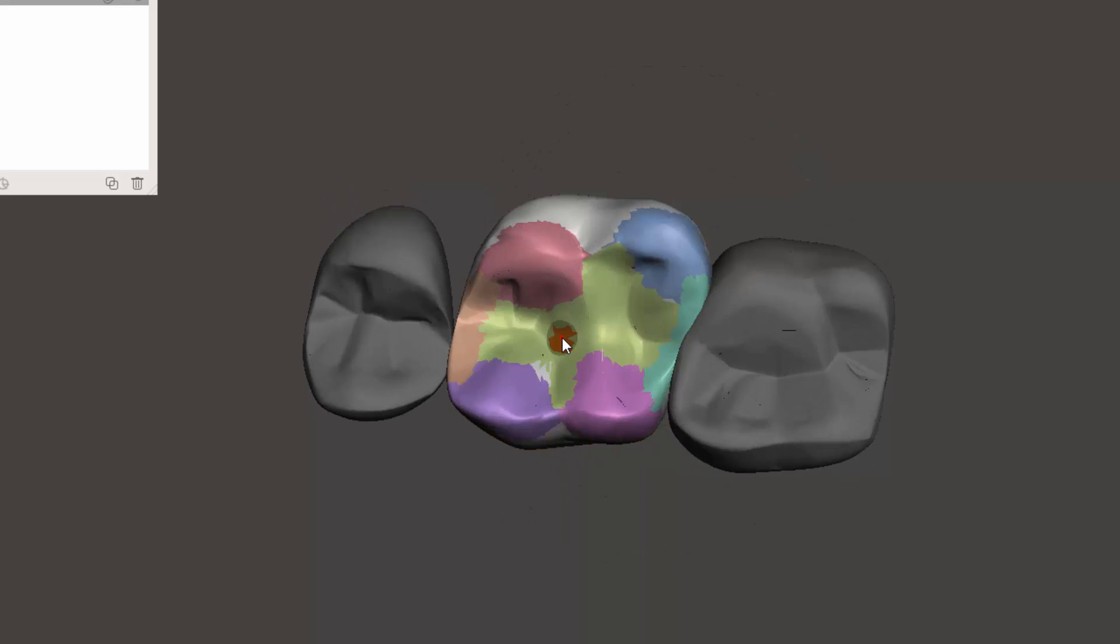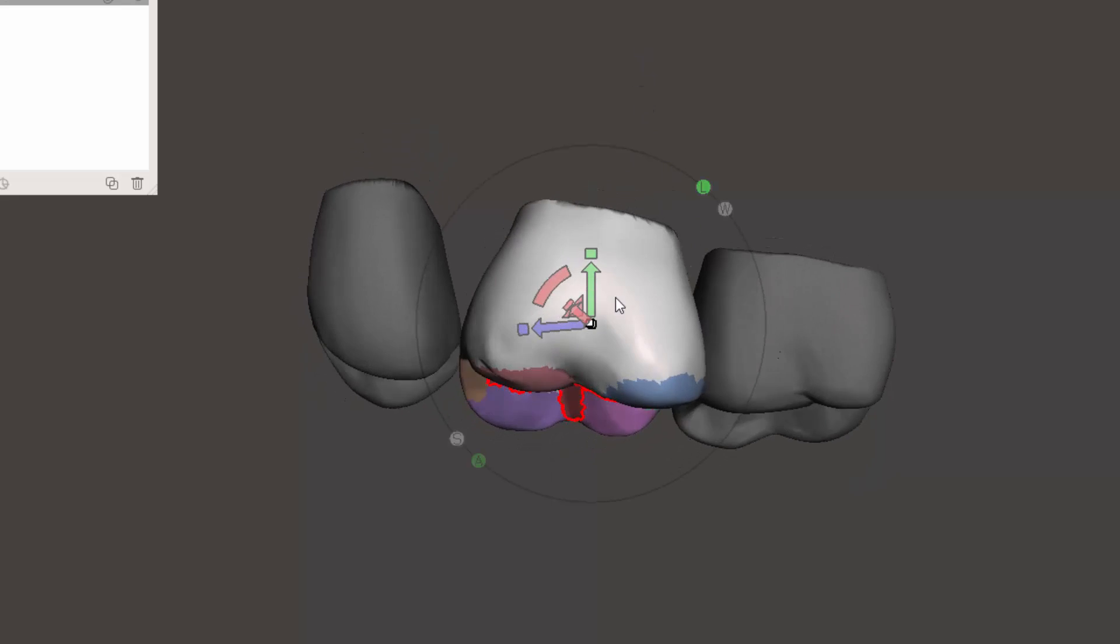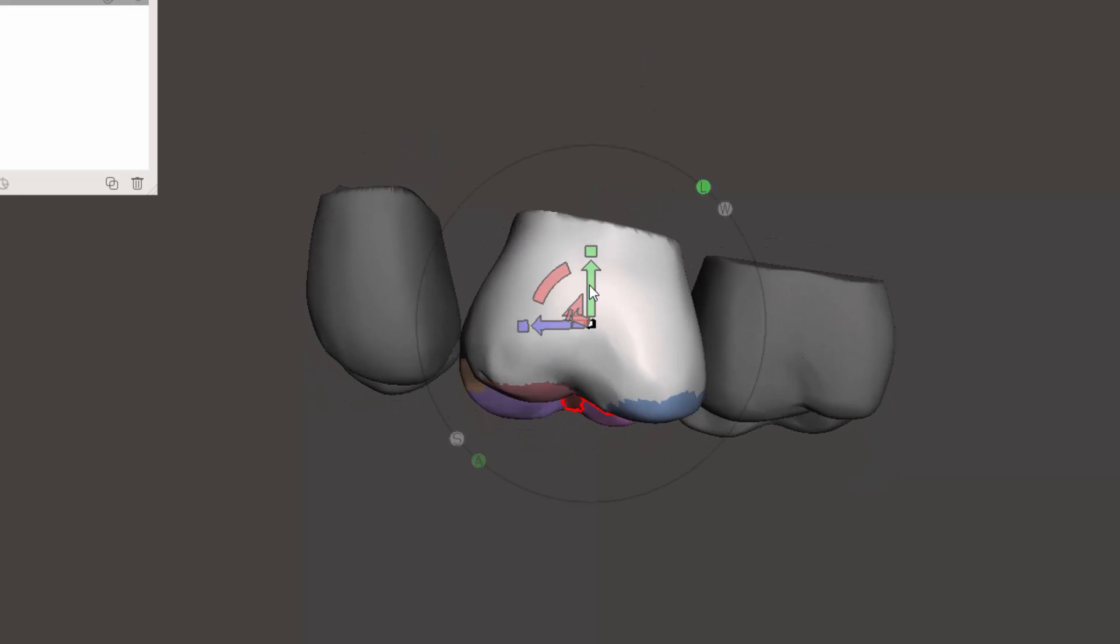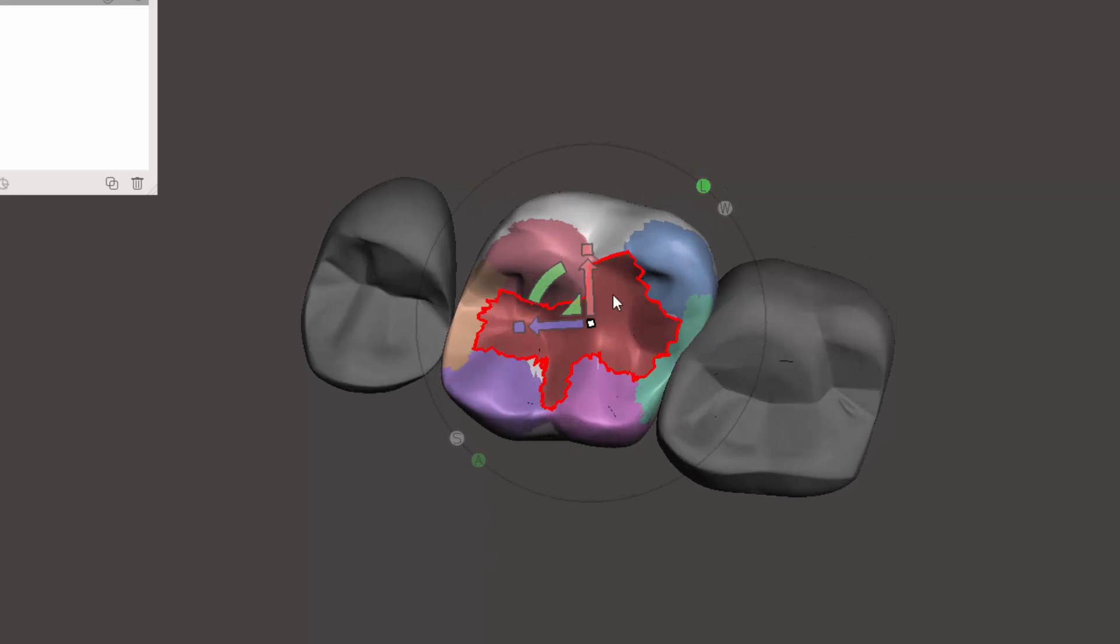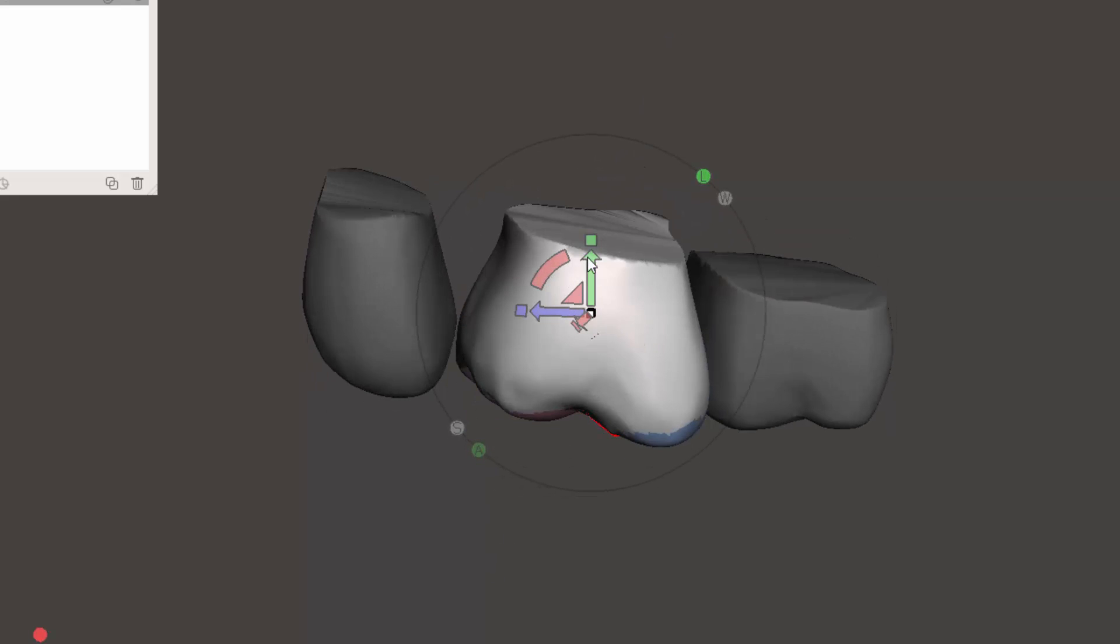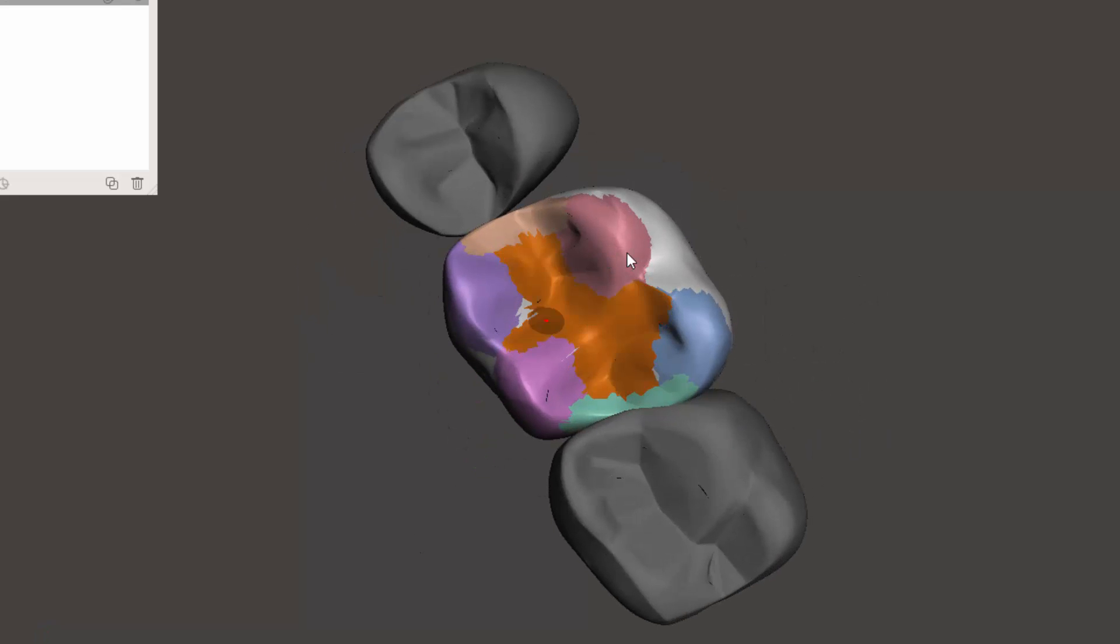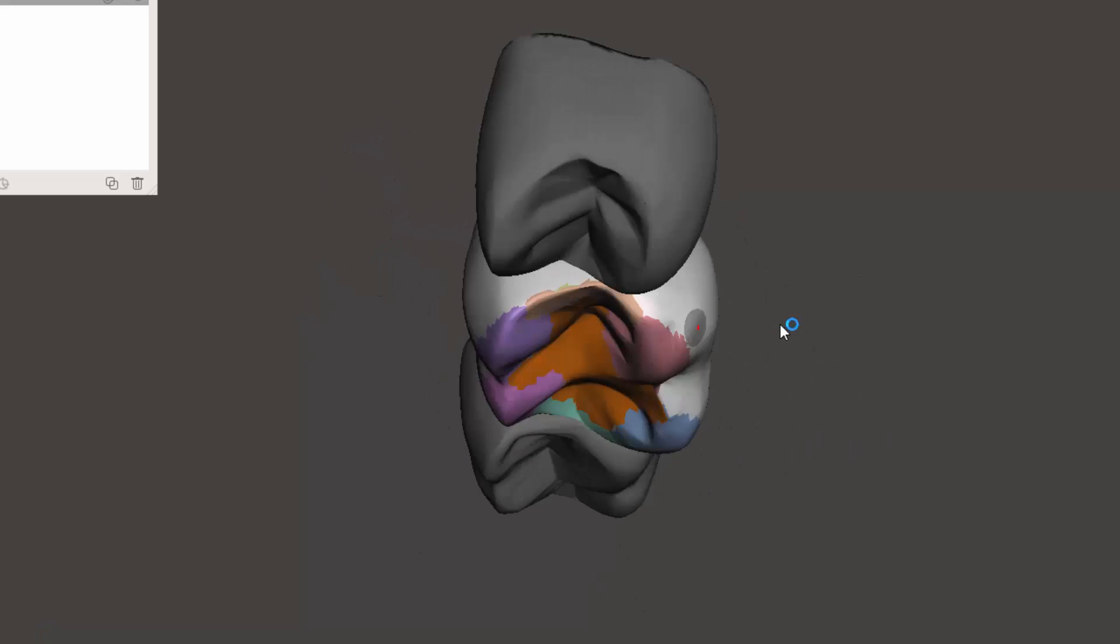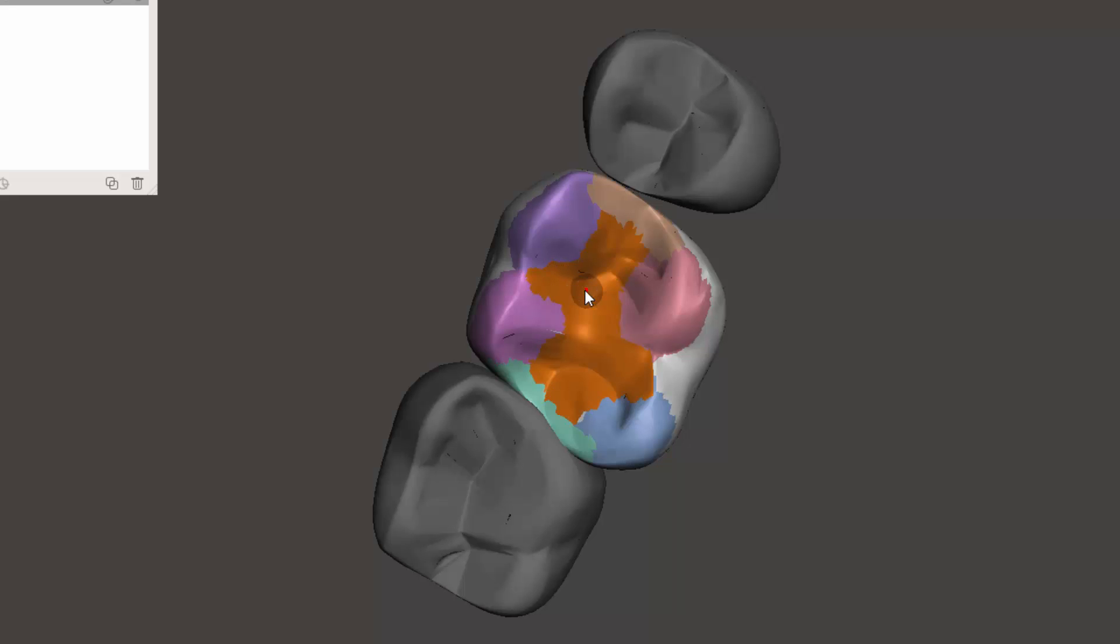And then say we want a really deep central groove, Shift+T. That's the problem. Sometimes we get these weird perimeters. So this is a one time. It doesn't happen that often, but there are glitches that sometimes occur. So I'm going to try and refine that sometimes just by refining the edges. We'll get that to go away.